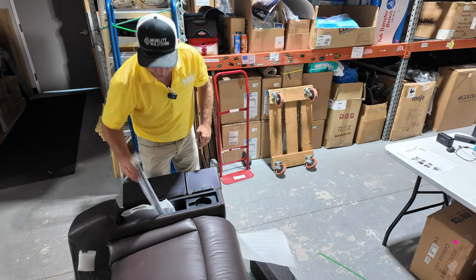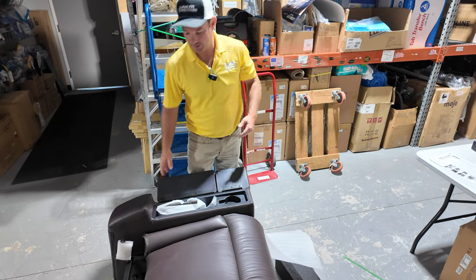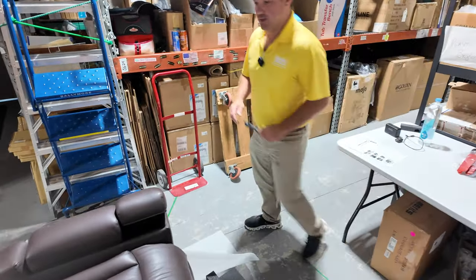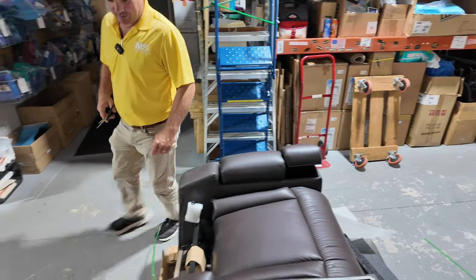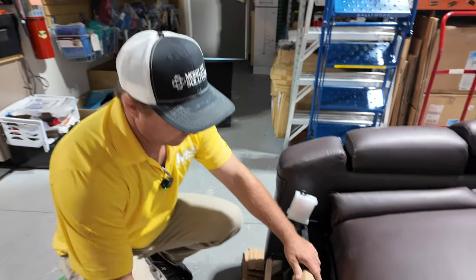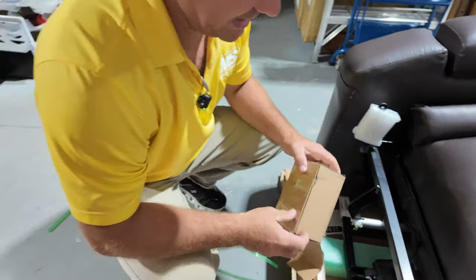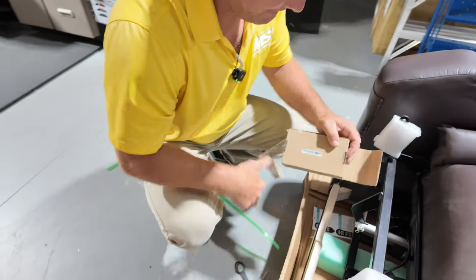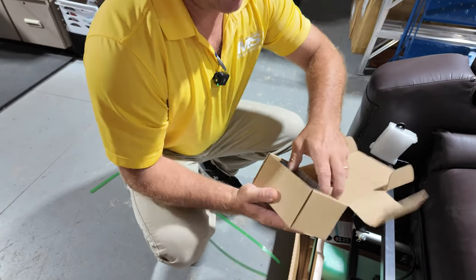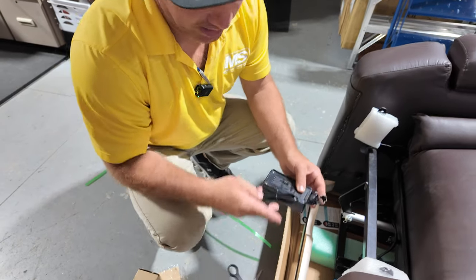There's a lot of cool accessories we're going to go over. Depending on what accessories you pick, it's going to ship like this. Let's keep continuing on the unboxing and then we'll show you different things about it. Right here is a lithium battery backup.